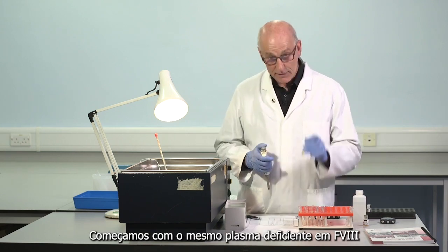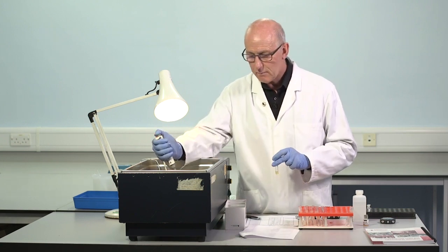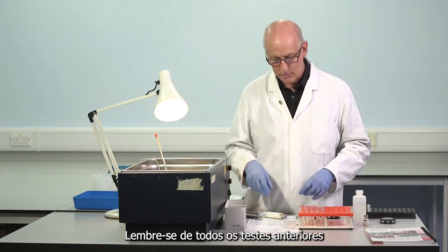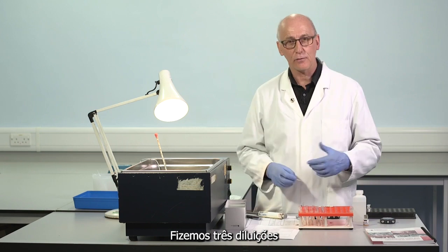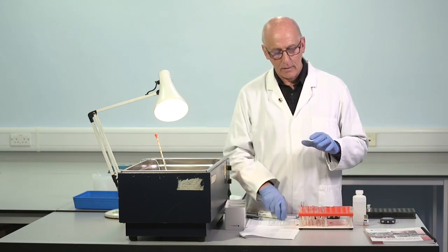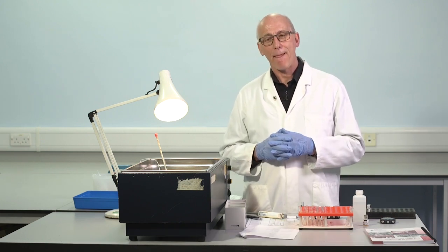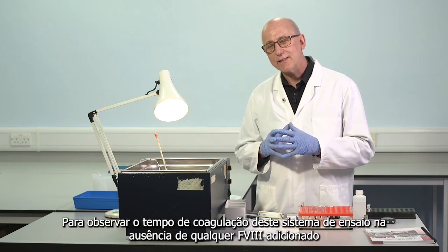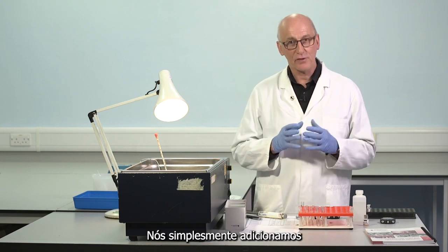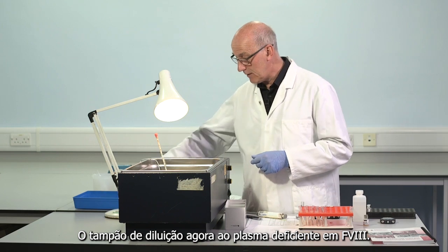We start with the same factor VIII deficient plasma, 100 microlitres. Just a single tube. And remember, for all the previous tests, we made 3 dilutions of test, standard, QC, and we added that to the 0% factor VIII, the factor VIII deficient plasma. To look at the clotting time for this assay system in the absence of any added factor VIII, we simply add the dilution buffer now to the factor VIII deficient plasma.